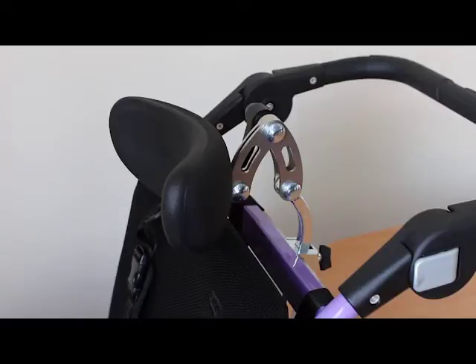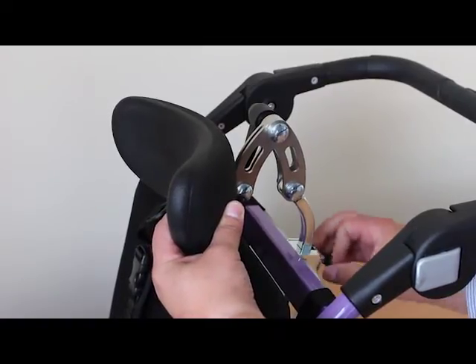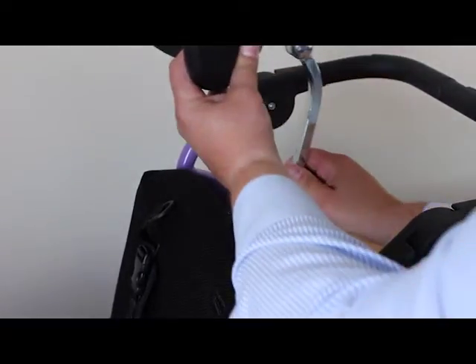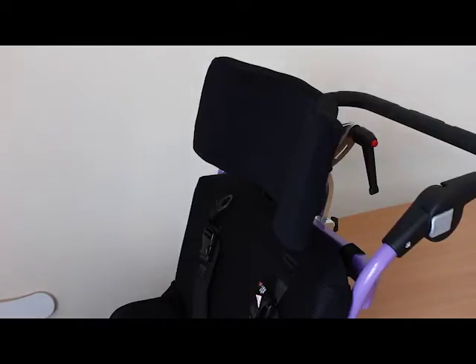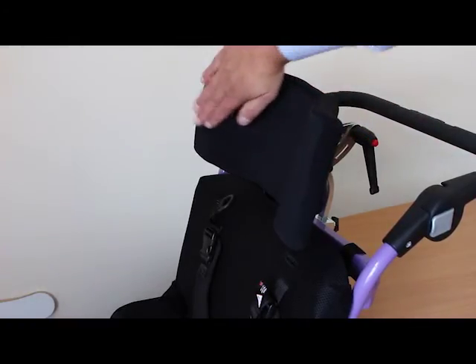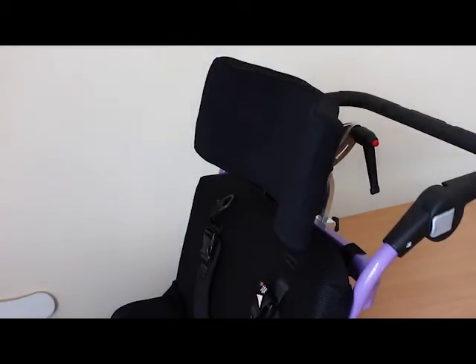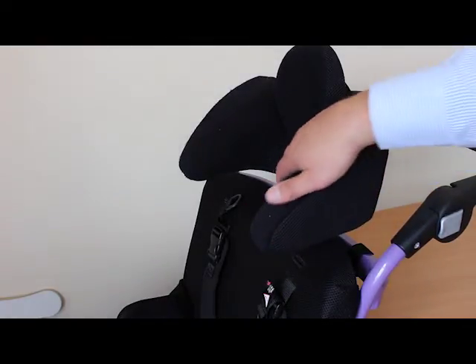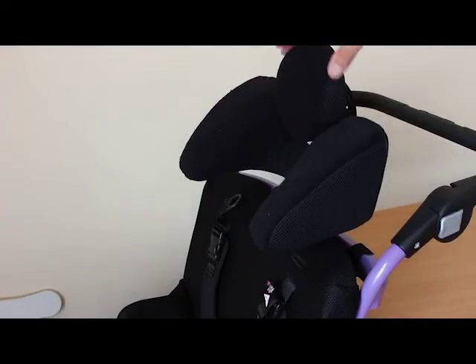The headrest has a series of adjustments — it's installed and removed on the bar. The bracket slides backwards and forwards and also secures the main stem. This particular headrest is useful for transitioning from a buggy-style headrest, giving shaping from side to side. Our most advanced headrest provides comfortable support around either side of the jawline with a back head stop for further control.